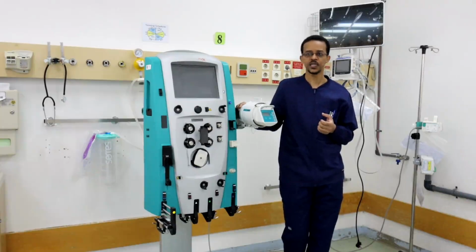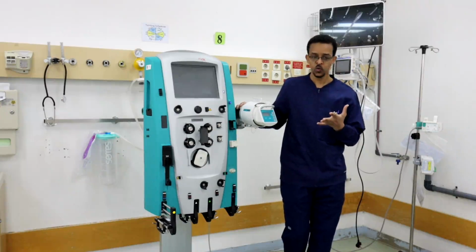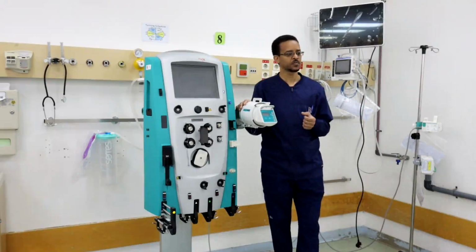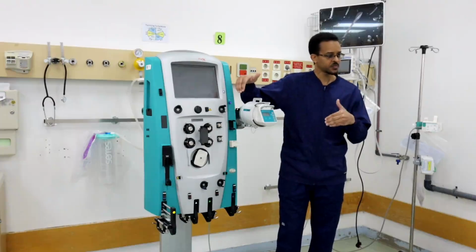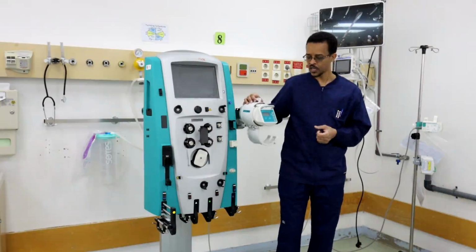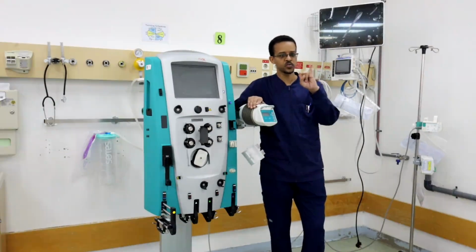In case of hemodialysis, we add fluids to the filter to make the concentration gradient. And in case of hemofiltration, we add fluid to the blood to make the volume of fluid going to the filter larger, higher flow and higher pressure. And if we add the fluid to the filter and at the same time we add fluid to the blood, at this point we are providing both of them. We are providing hemodialysis and we are providing hemofiltration. So the therapy that we can provide through the machine, first we can provide SCUF, slow continuous ultrafiltration.